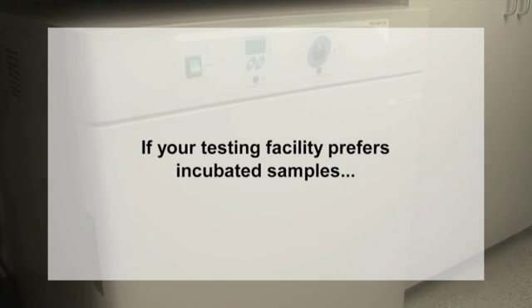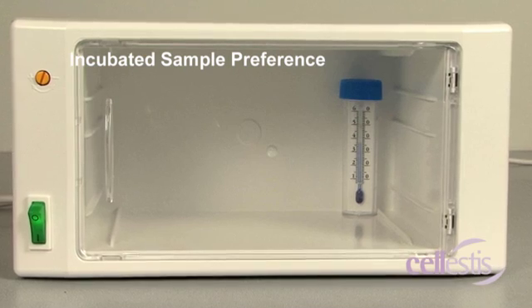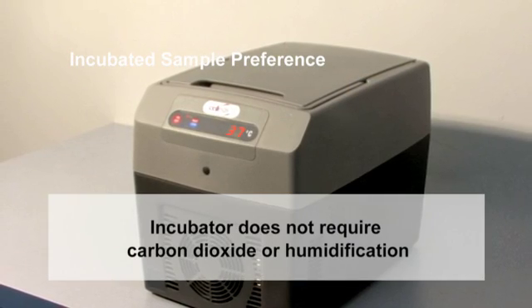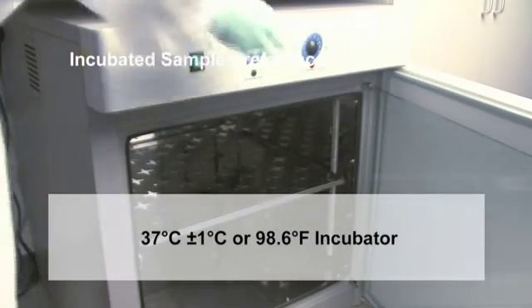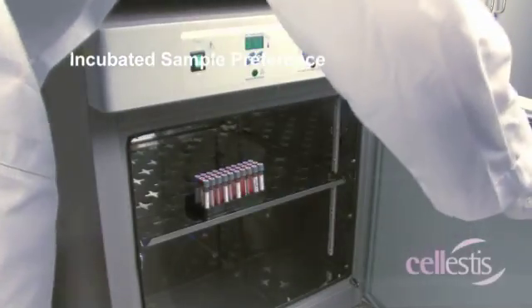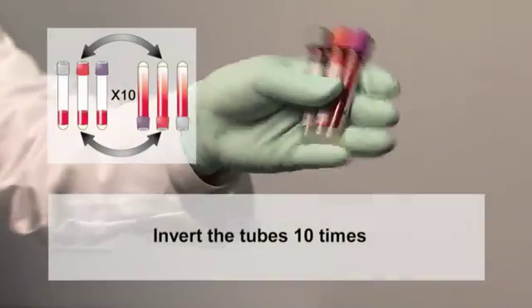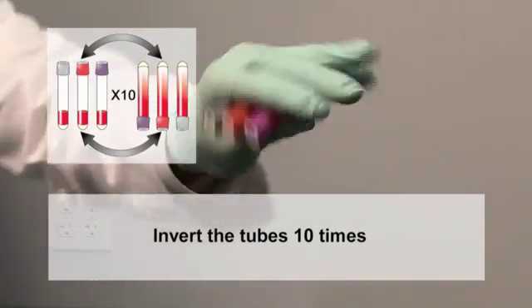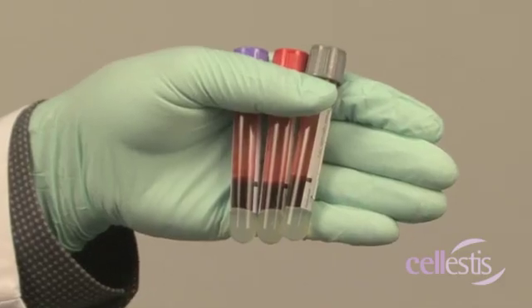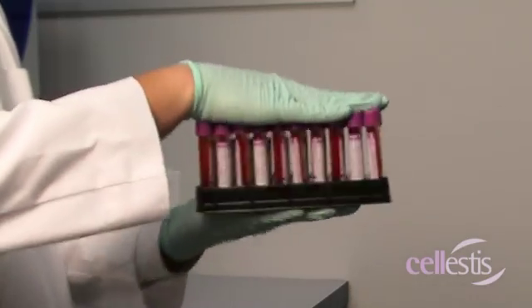If your testing facility prefers incubated samples, any standard 37 degrees Celsius incubator can be used. The incubator does not require carbon dioxide or humidification. The tubes must be placed upright in a 37 degrees Celsius or 98.6 degrees Fahrenheit incubator as soon as possible, but at the latest within 16 hours of collection. If there is a delay between the blood collection step and the incubation step, remixing of the tubes by inverting 10 times must be performed to ensure a redistribution of the lymphocytes within the blood. If there are a large number of samples, this mixing can be performed on a rack of tubes all at once.